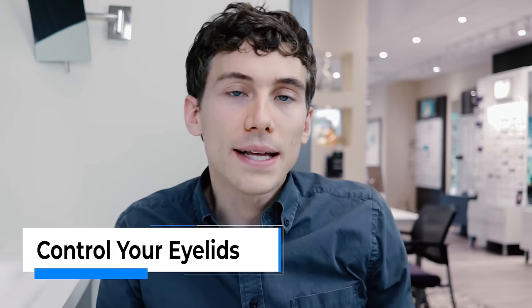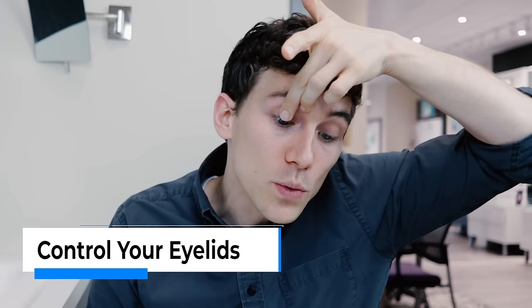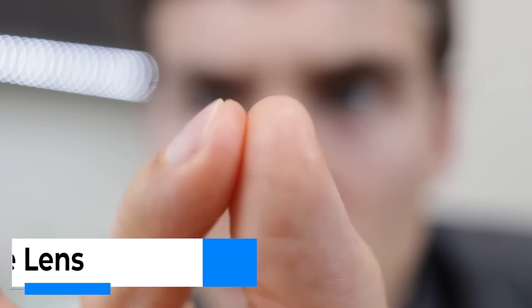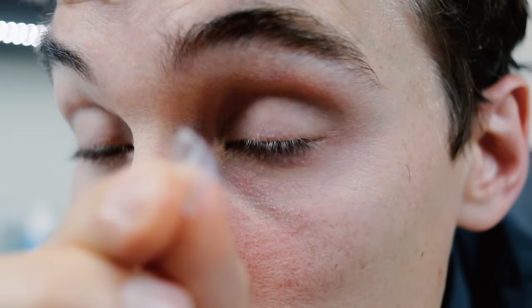The next big step is being able to control your eyelids. I personally like to use my non-dominant hand to hold the upper eyelid with my middle finger, and then I use the middle finger of my dominant hand to hold the lower eyelid. That allows me to really grip and hold things open so that I don't instinctively close my eye. That also leaves my pointer finger and my thumb free so I can actually grip the lens. You want to hold the pads of your fingers together and make kind of a little kissing tweezer motion — that's the part of your fingers you're going to touch the contact lenses with. Just because your fingers are so dry, when you make that little kissing tweezer motion, you'll actually grab onto the lens and you can easily lift it off the eye.